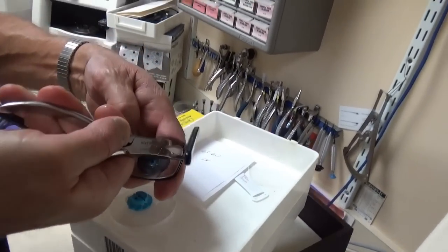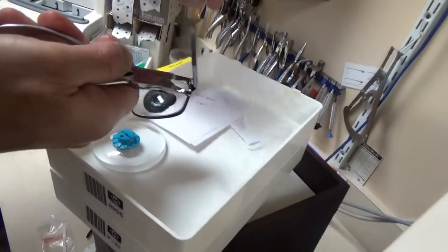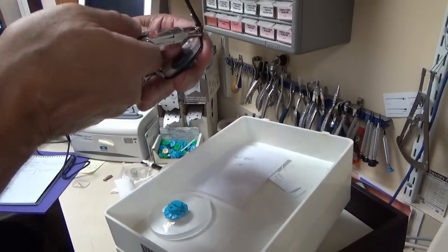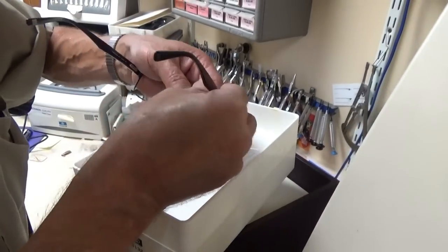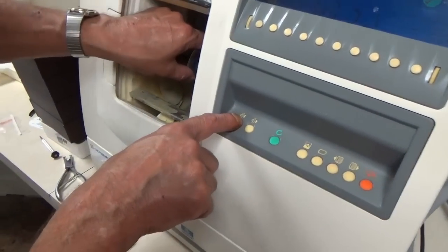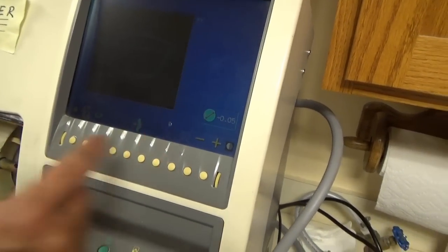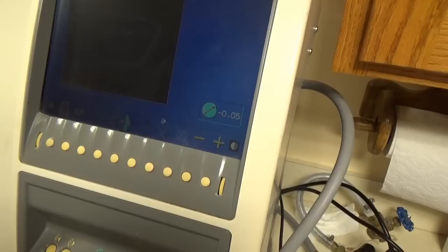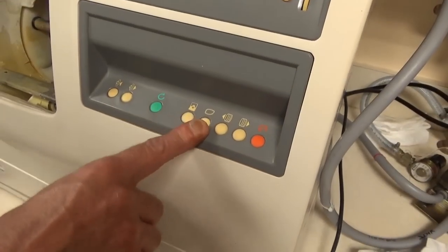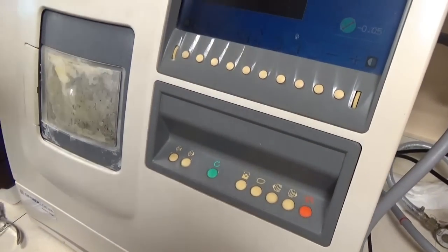Just see how the lens fits in there — line the bevel up. You can see there's a little gap. It's very little, so what we'll do is put it back in the machine — test fit it. You might want to push this to stay on the right lens, and I'm just going to take a little bit off because it was very little — just a trim. This is my start button, but if I'm just trimming, I just want to use that.